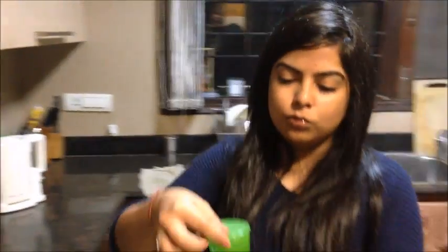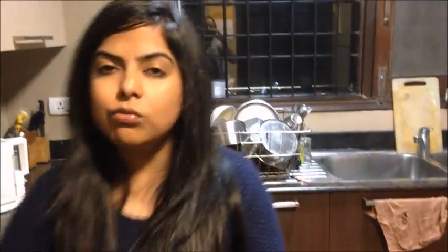To boil the cup in the microwave, you need a small microwave-safe container. I like this one because the shape accommodates any size cup and the lid fits quite loosely, so when the water is boiling, steam can escape easily even with the lid on.